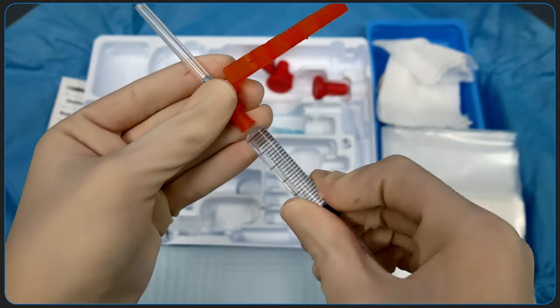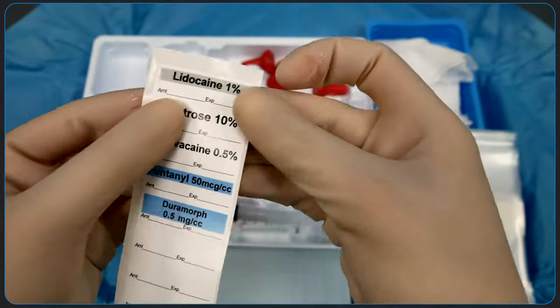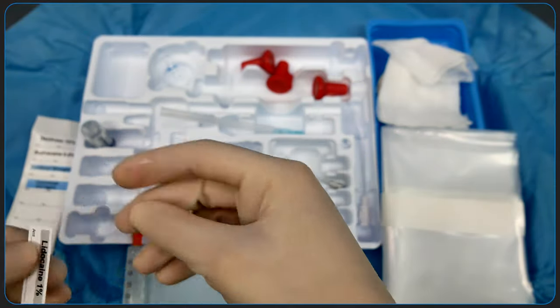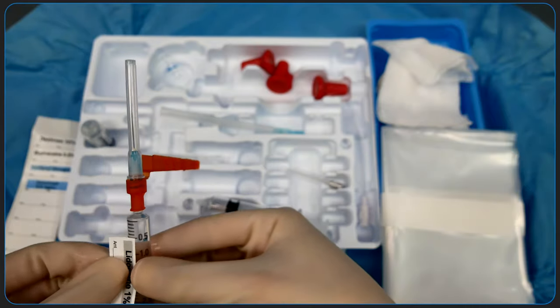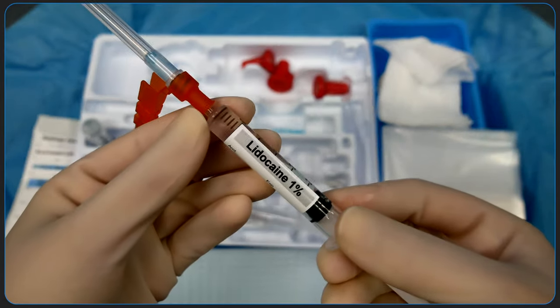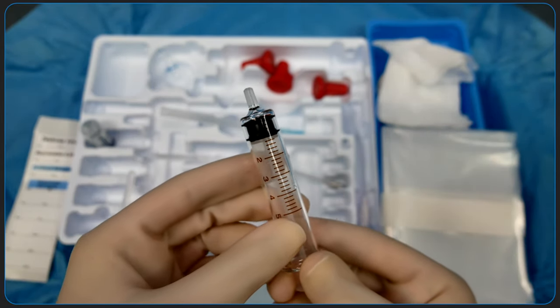The slip tip syringe will go into the 25 gauge needle. Be sure that it's a solid connection between the two. Don't forget to label your syringes to avoid mistakes. This is especially important if you're setting up the kit prior to the case starting.